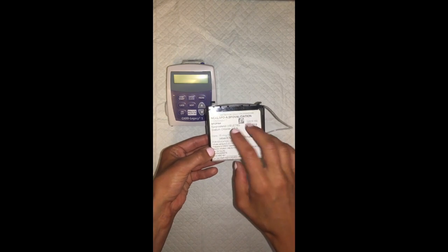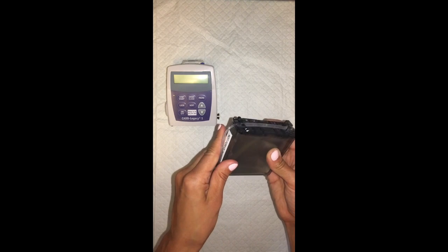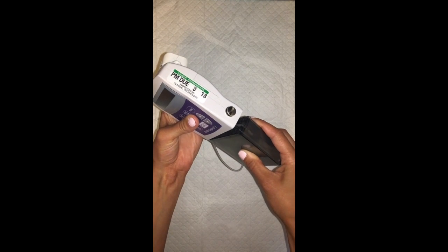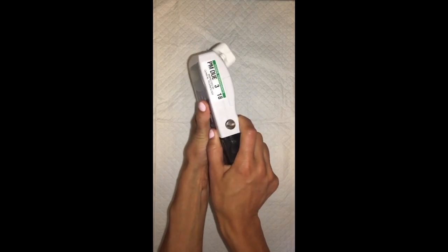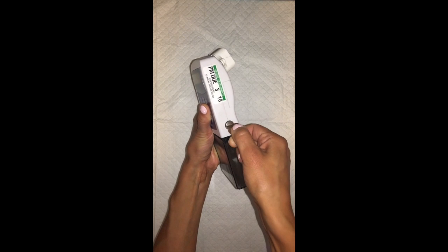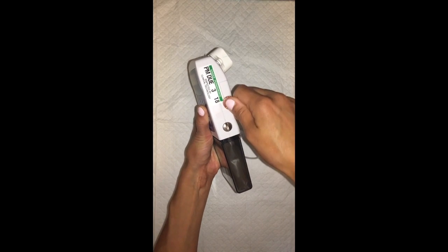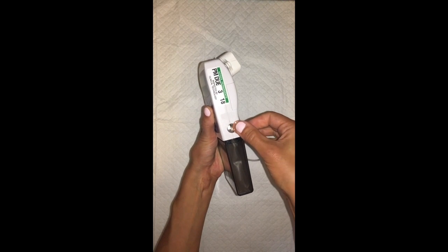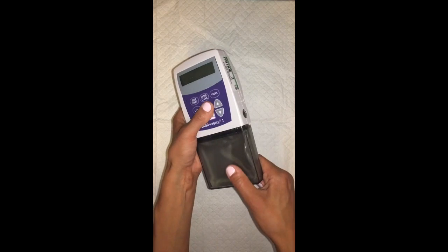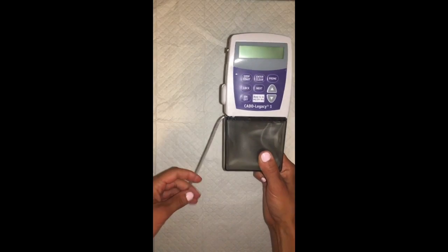To connect the cassette to the pump, you're going to look for the 2 feet on the cassette, and those will latch over the 2 small bars on the actual pump, and then the cassette just pops right into place. While you hold it together, you're going to take your coin and push down and turn counterclockwise. This locks the cassette onto the pump. When the notch is in line with the seam of the pump, the cassette should be locked into place.